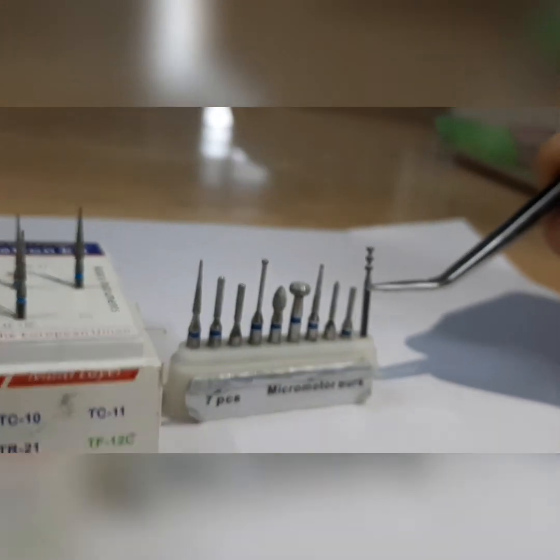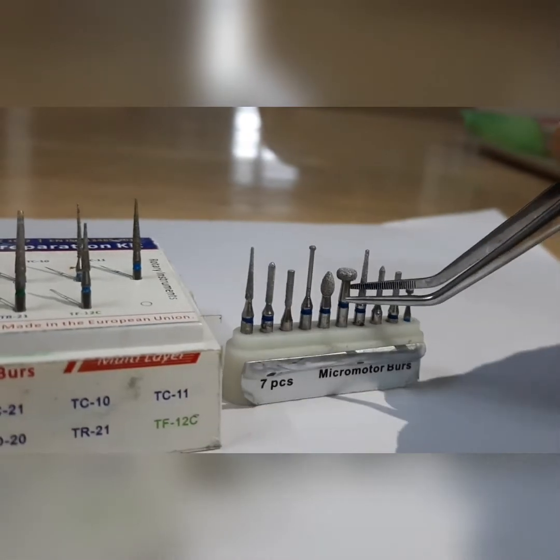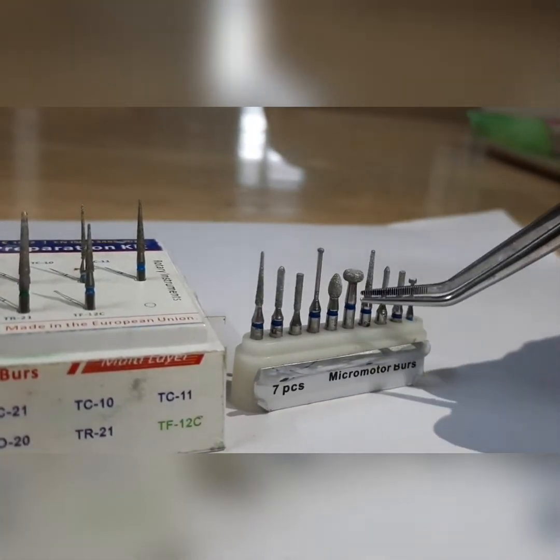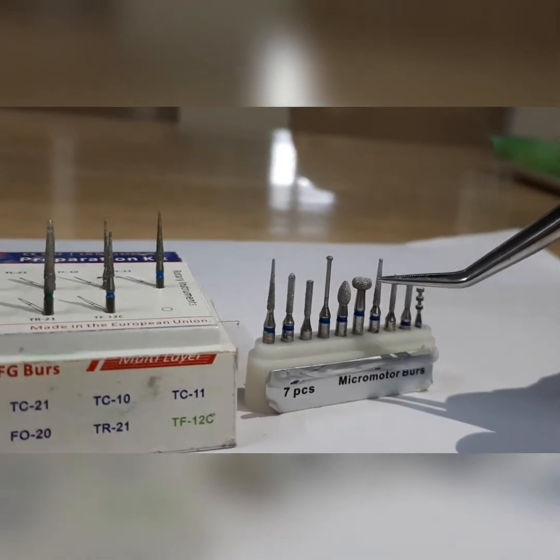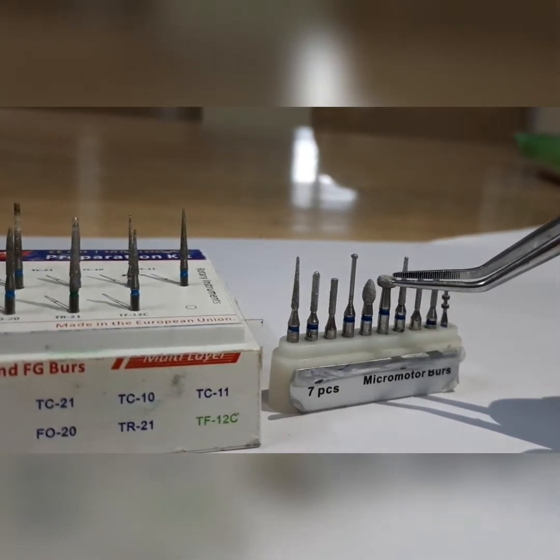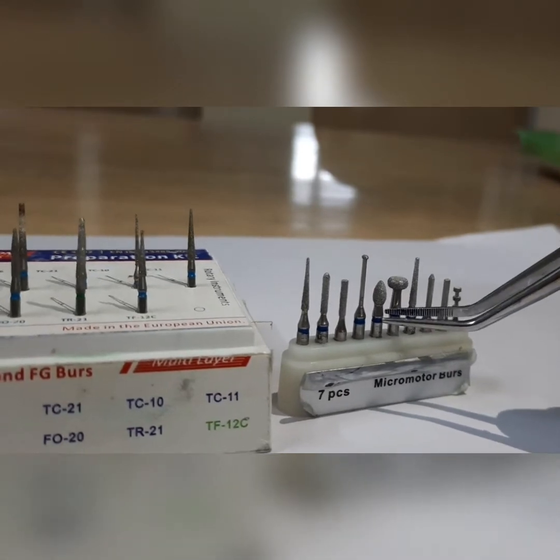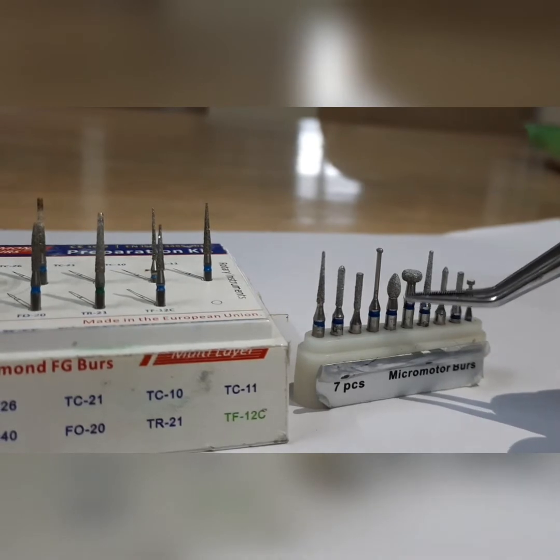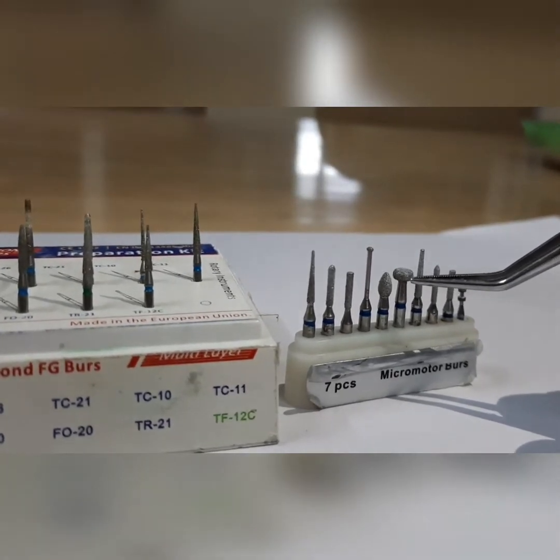The next burr we commonly use is the wheel diamond. The wheel diamond is for incisal reduction — if you see this burr, it is kind of a wheel on the top, used for incisal reduction or lingual reduction. The football diamond is also used for lingual reduction on central incisors, lateral incisors, or canines.